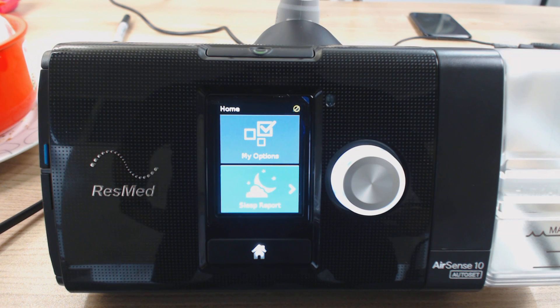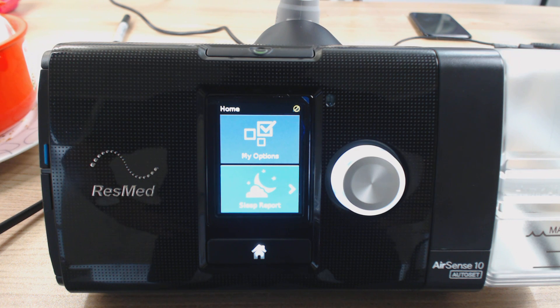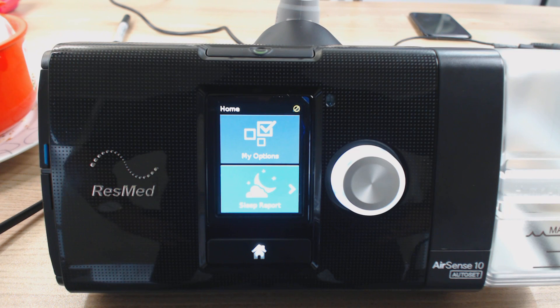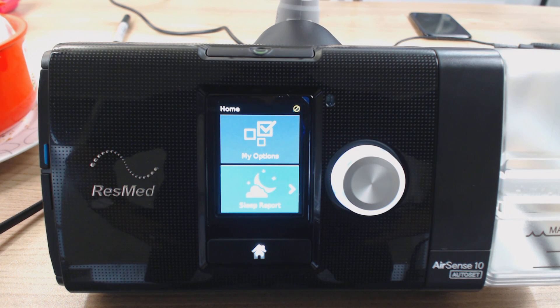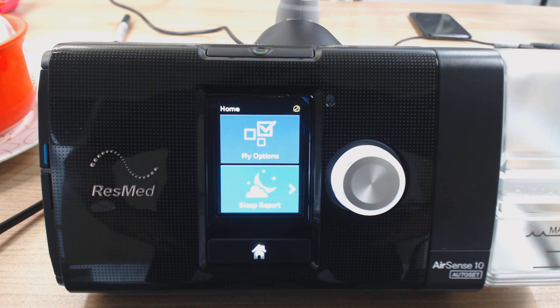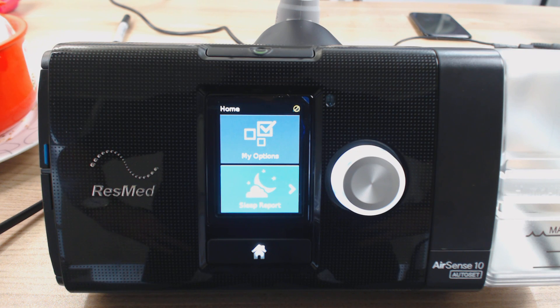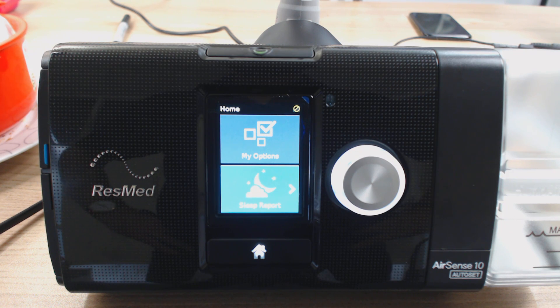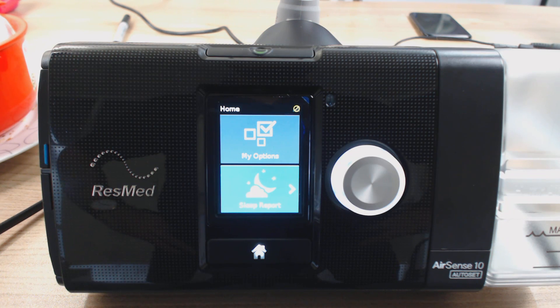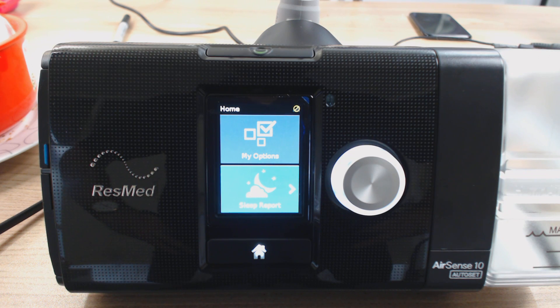G'day guys, Nick here from CPAP Reviews. Welcome to part three of three on our series on the ResMed AirSense 10 machine by ResMed. In this part, we are going to be looking at how to get into the clinical menu. This is the menu that's a bit more advanced than the patient menu — it's where you can change things like the mode of the machine, whether you want it to run in auto or CPAP, the pressures and things like that. It gives you a bit more access to the back end of the machine and a few more options than your standard basic menu.